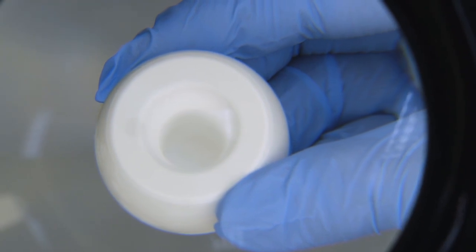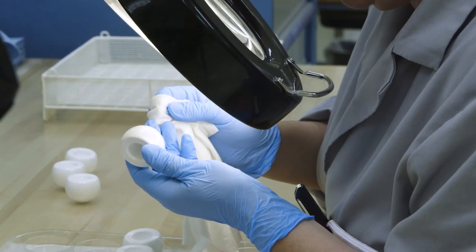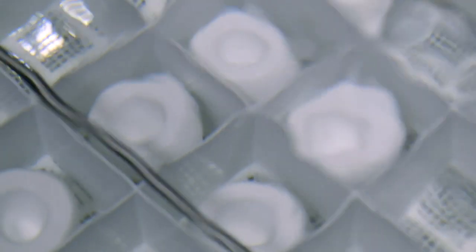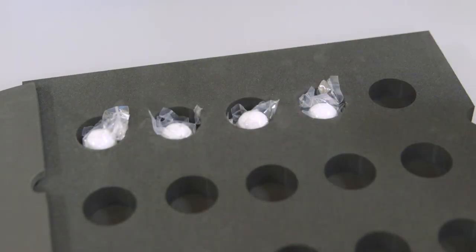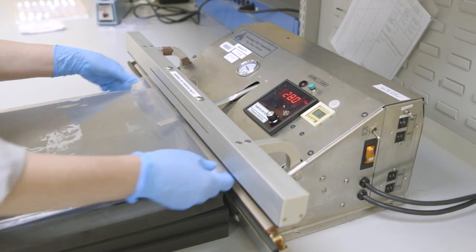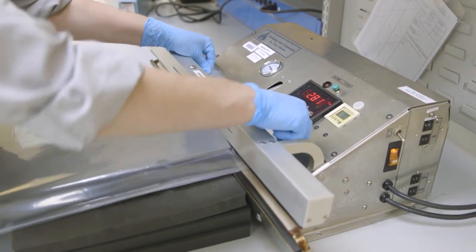The ceramic hip replacement components are visually examined, cleaned, bagged, and protected with foam. They are now ready to be shipped to our customers.